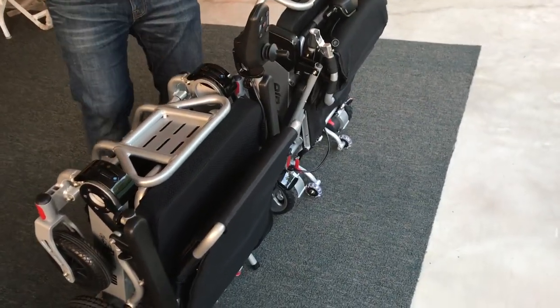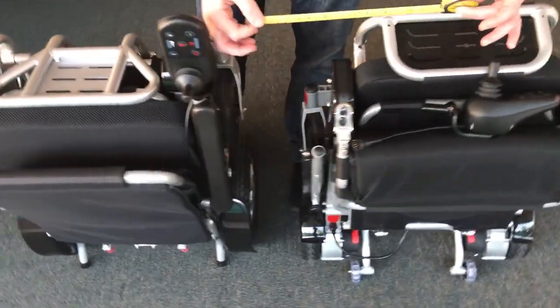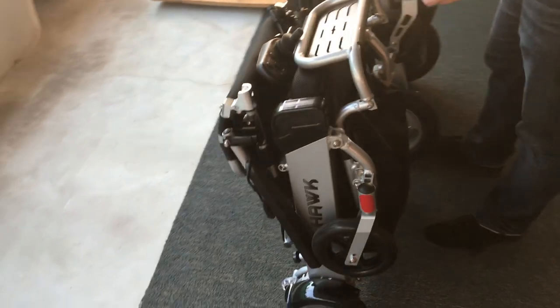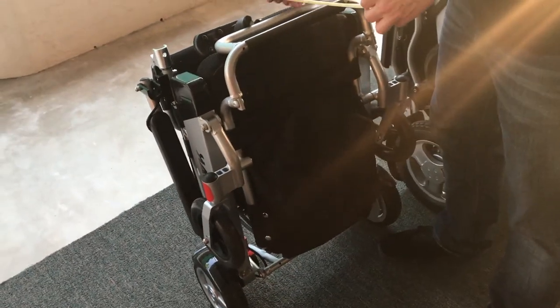For the first time we're going to get very in-depth in this video. In addition to just showing you the functionality of the chair along with price points, which we'll mention later on, we're going to show you exactly how these chairs measure up.